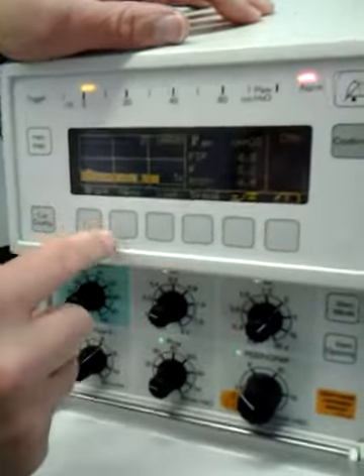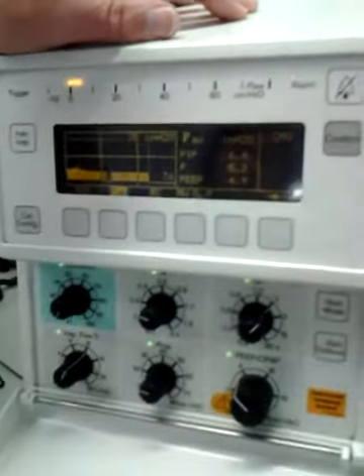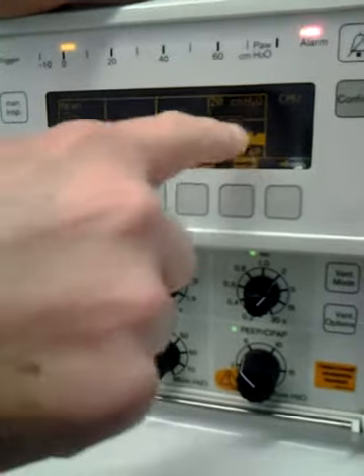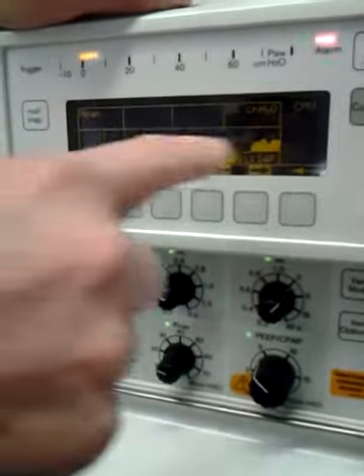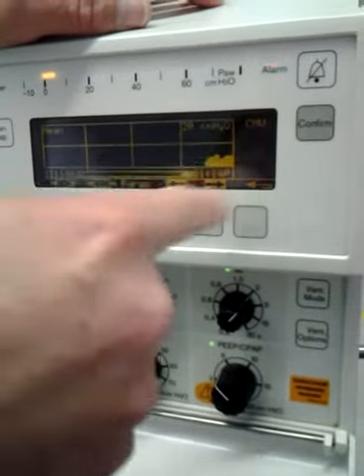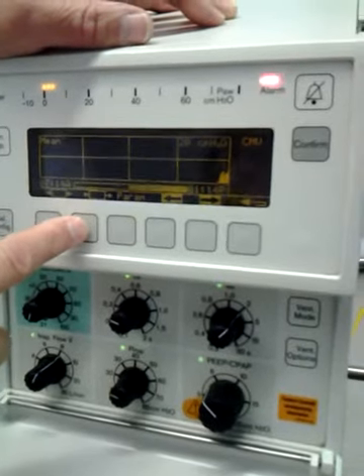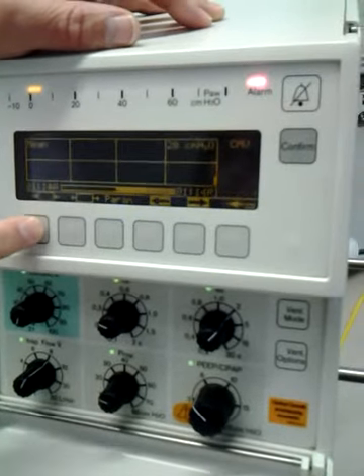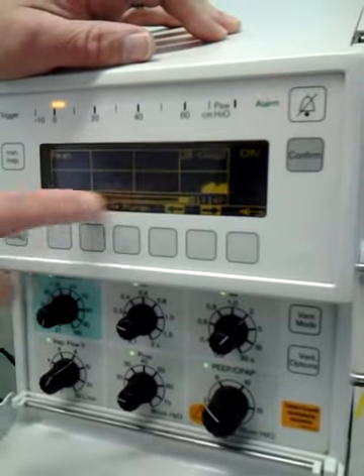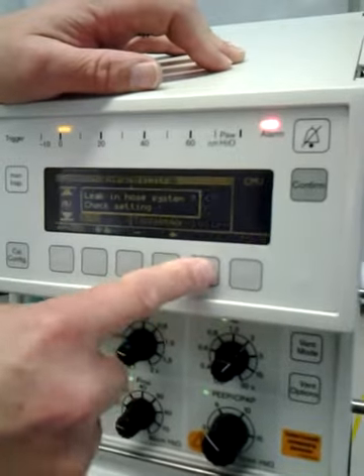When you go to measure, whichever one you pick, all those screens are put together in one spot. And then trends, it'll do whatever time frame you want to change, whatever parameter you want to trend, and you look through and move it around. So like here, time, how much time you want there, and it gives you the time that's recorded. The time of year is off. And just home, and then your alarms, and your home button.